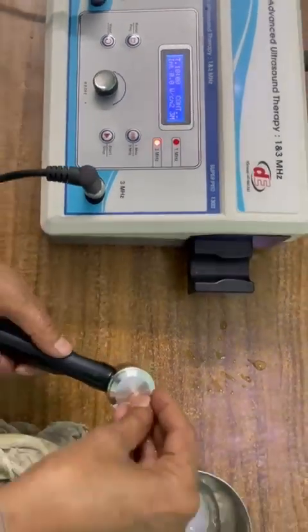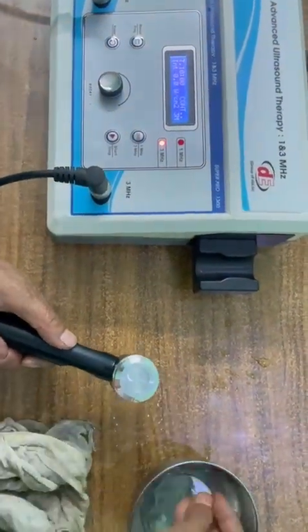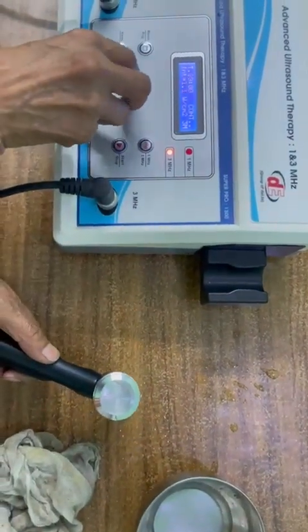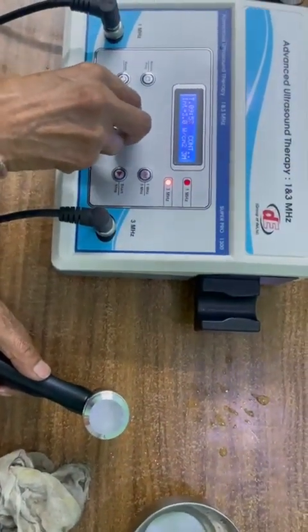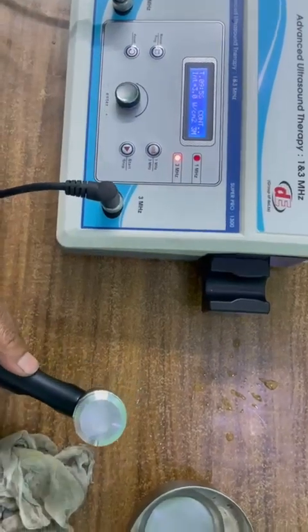Now simply put some water drop on ultrasound head and increase the intensity. It is working on 3 MHz.